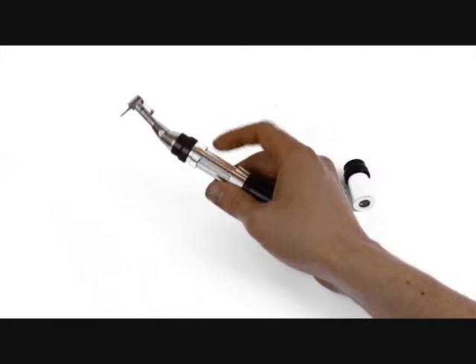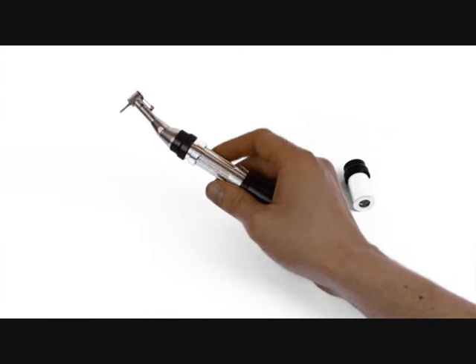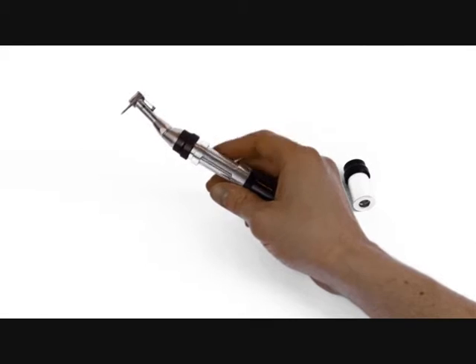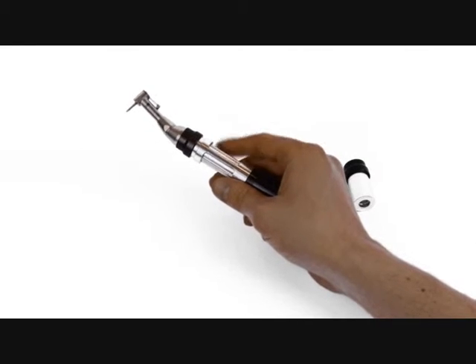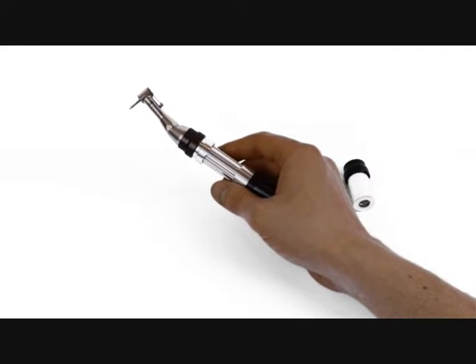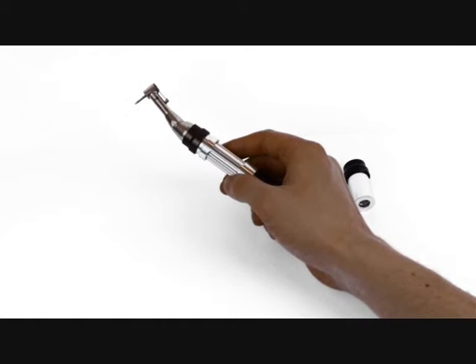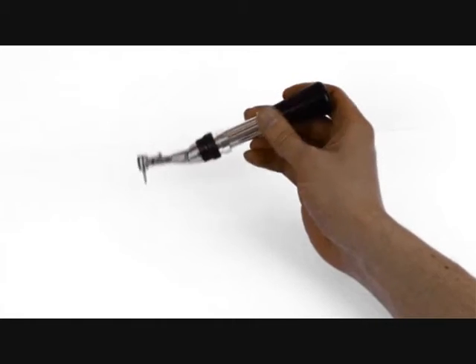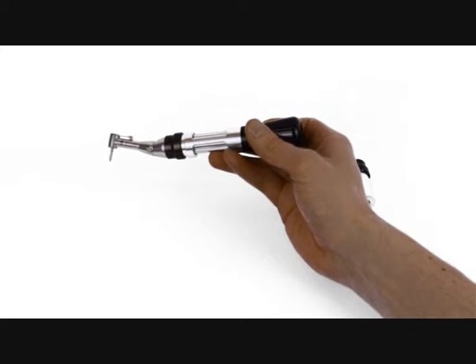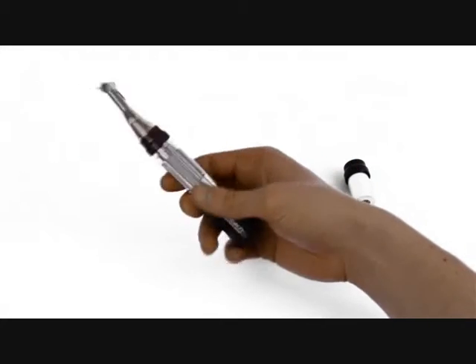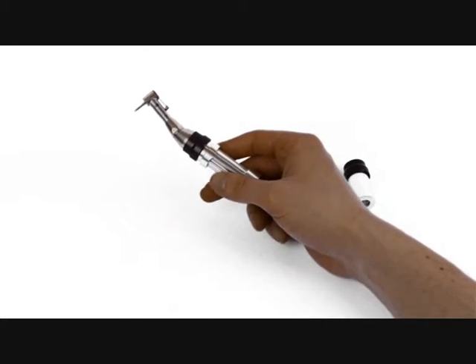This can be activated with one hand. Simple rotation of this central cylinder in the body and you can unscrew and tighten cover screws, healing abutments, implant impression copings. So it allows very easy access, particularly to the back of the mouth, where otherwise you would have used a hand-held screwdriver.